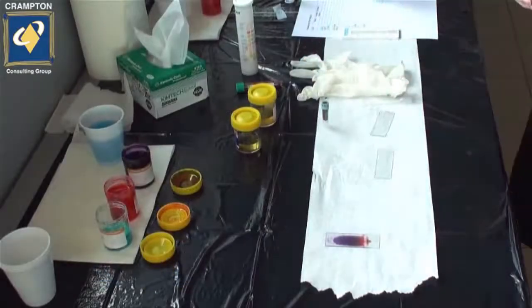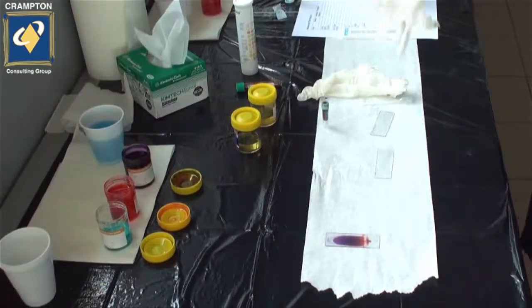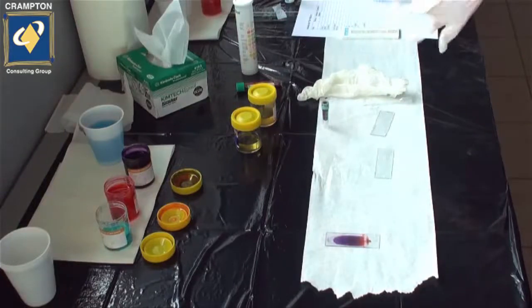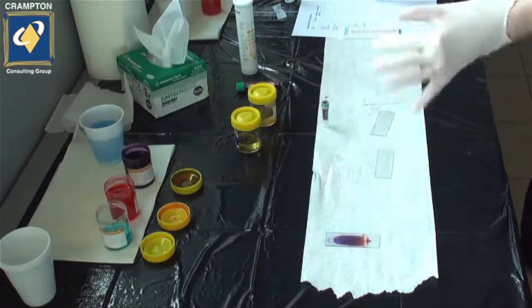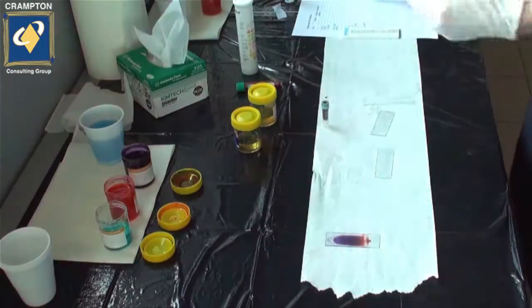Always make sure you're wearing gloves. We never know what can be in the sample. It's always best to take proper precautions and use the correct personal protective equipment.